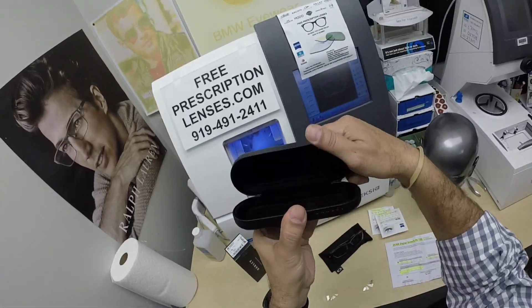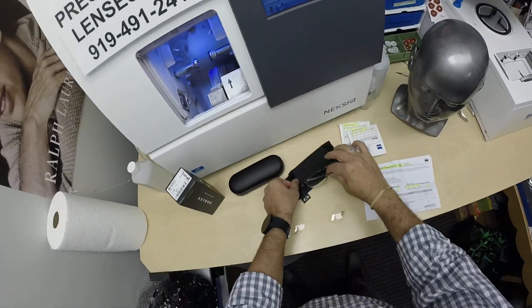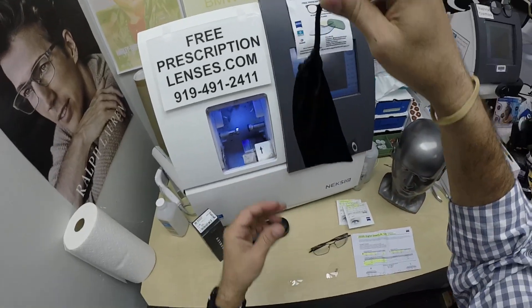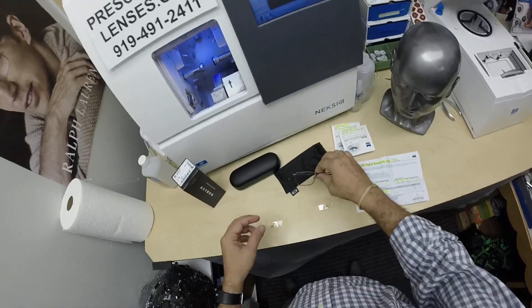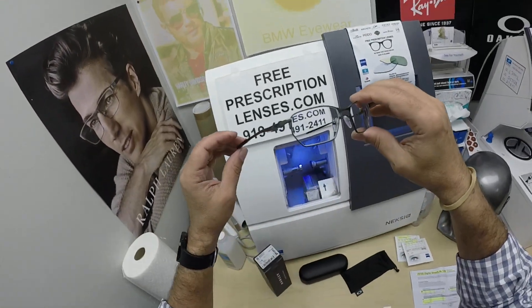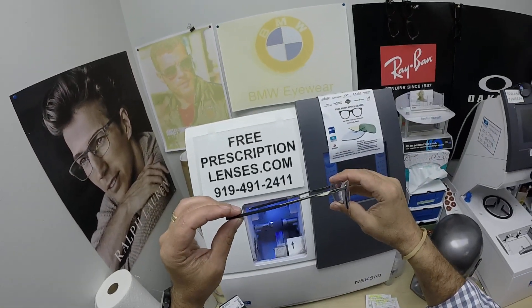It comes with an Oakley hardshell case and the Oakley cleaning cloth that doubles as a carrying bag. You get the demo lenses from Oakley, but this is the star of the show — the main attraction, a really nice frame.